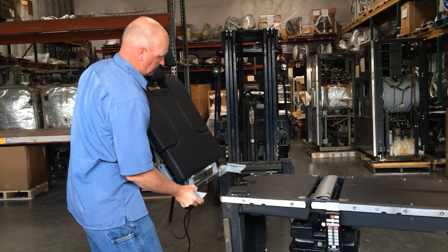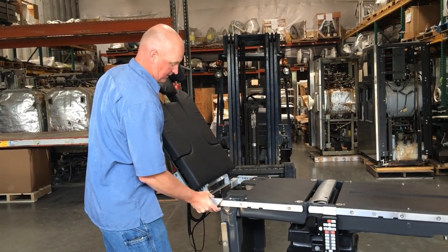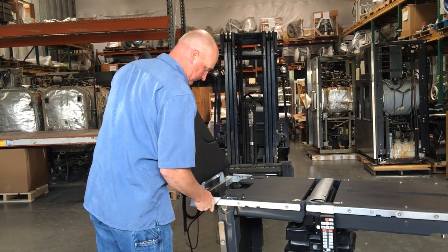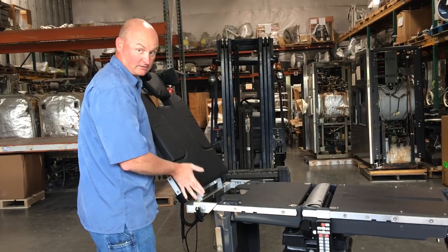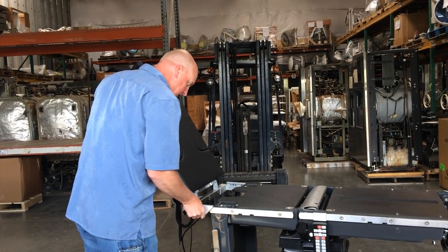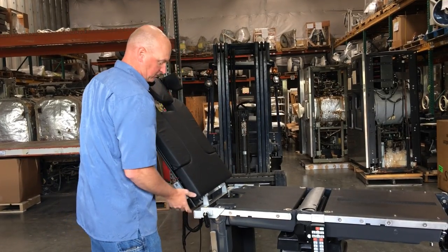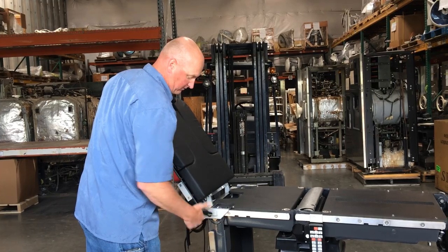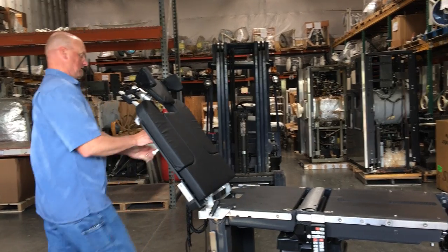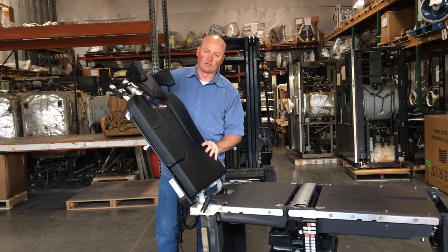Those detents were not hurting us at all. So you just line that up there and clip it on here. Get that lined up — this side's stable, this side moves. So it's better to get the right-hand side on there first. Then this side moves back and forth just a little bit. Slide that on until the bottom's out, twist that tight — twist that tight. Now it's on there stable.